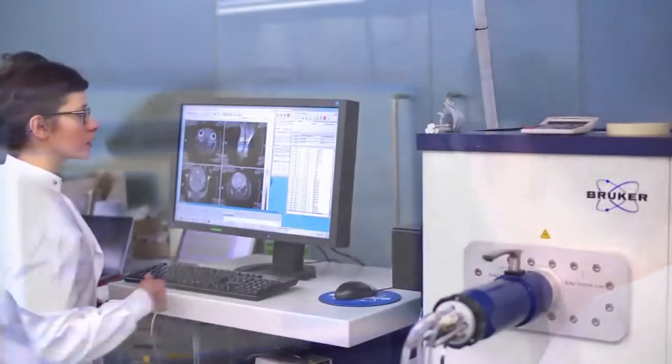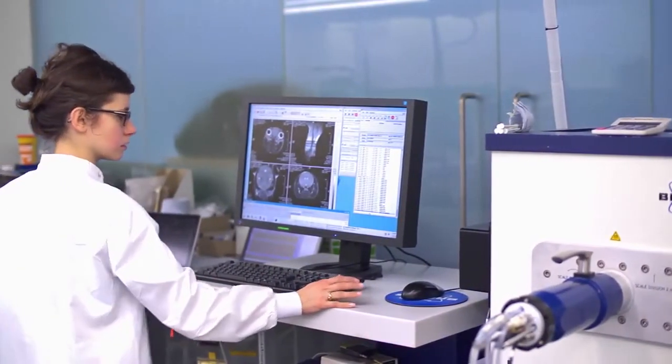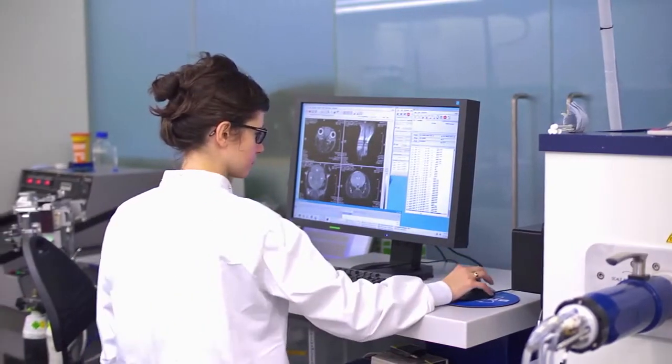When I first heard of these low field systems, I was quite dubious, but I was actually quite pleasantly surprised working with the ICON system and low field systems.